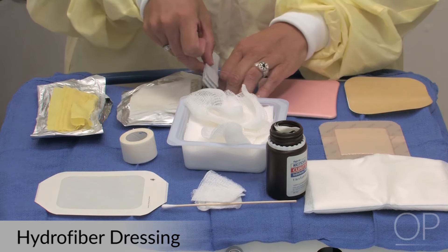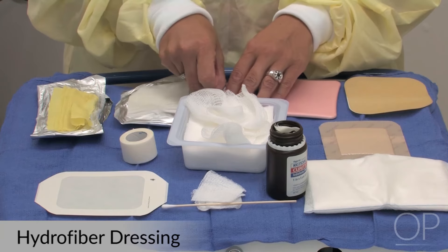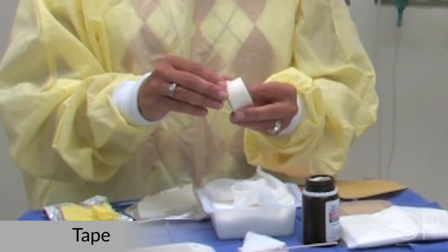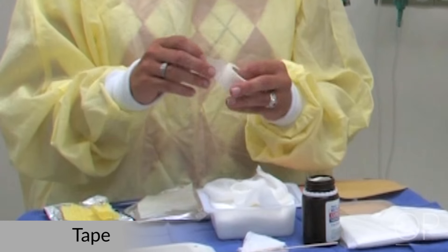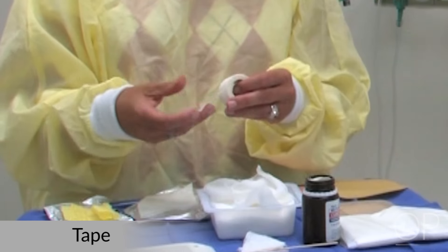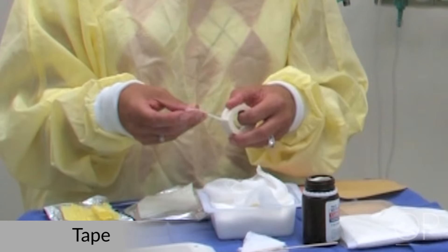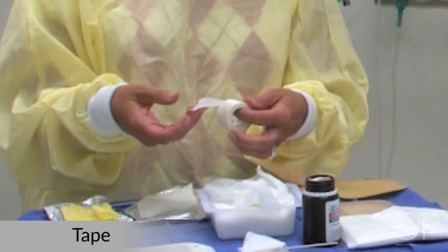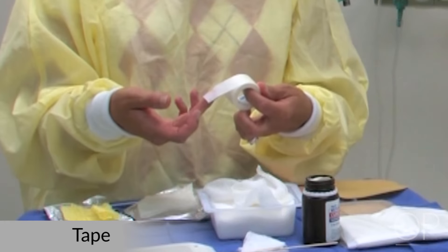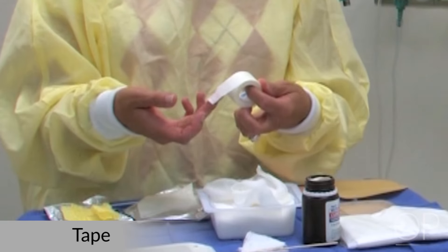So those are some of the products that we can use. Don't forget that in choosing tape, you should use a tape that is mild on the skin — preferably a paper tape — that will not cause further skin tears on the patient.